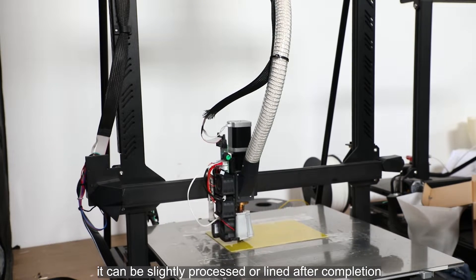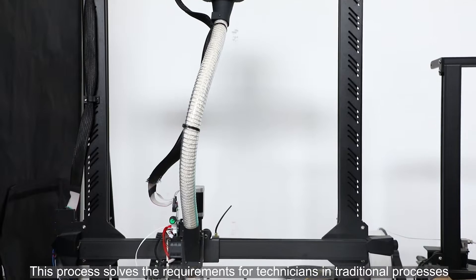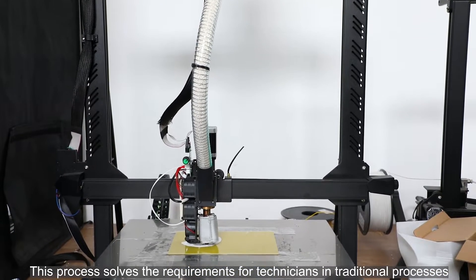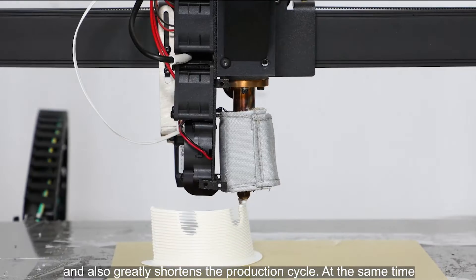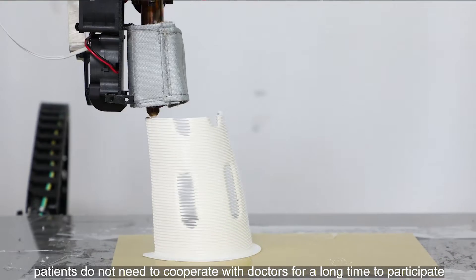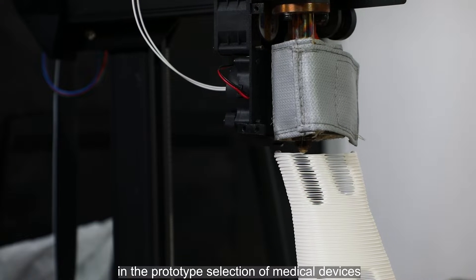Generally, it can be slightly processed or lined after completion, making it convenient for the patient to wear. This process eliminates the requirement for specialized technicians and greatly shortens the production cycle. At the same time, patients do not need to cooperate with doctors for extended periods to participate in prototype selection of medical devices.